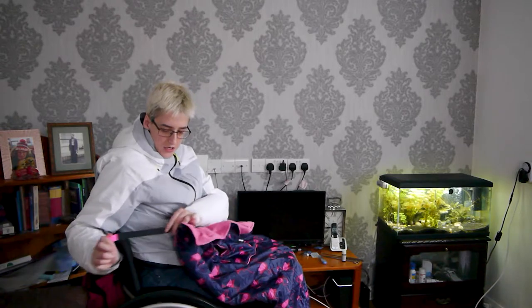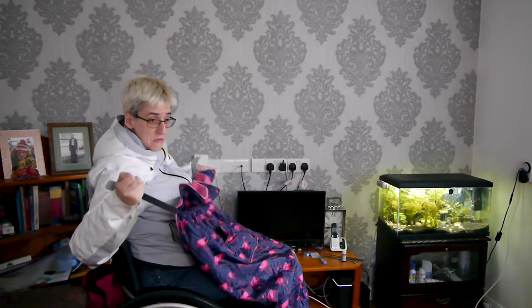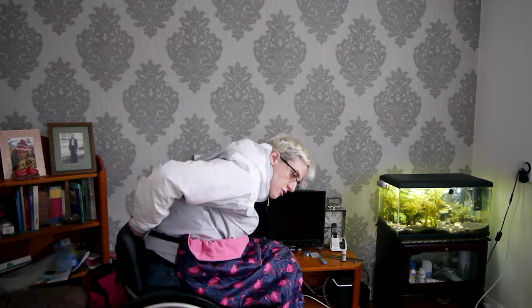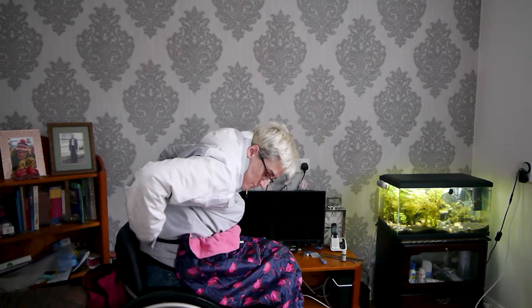With these straps you can either attach it to the frame or around your back. I prefer to attach it around my back because I need to move forward to pick stuff up and clean up after Max. They're stretchy and velcro, and you stretch it around the back. The strap is nice and stretchy so it fits around my waist comfortably. I stick it together and then it doesn't get caught up on my wheels, which is great.